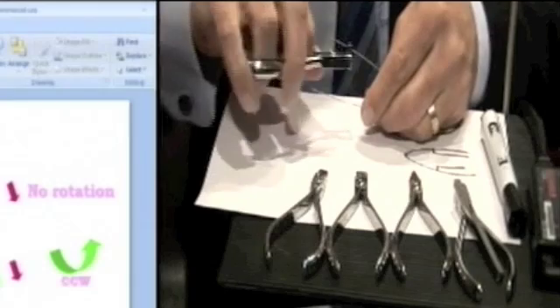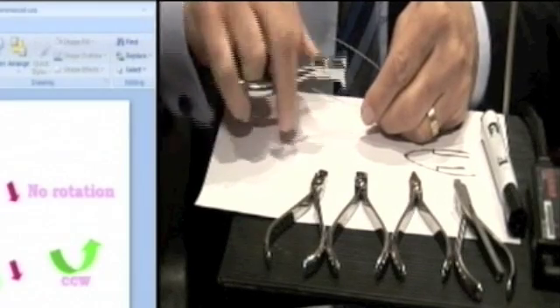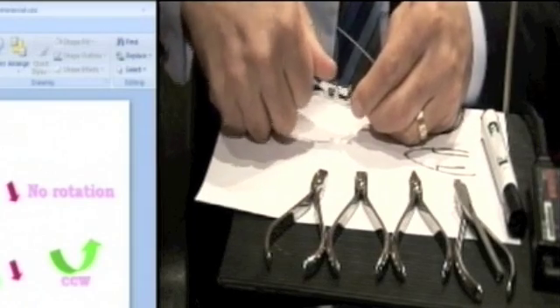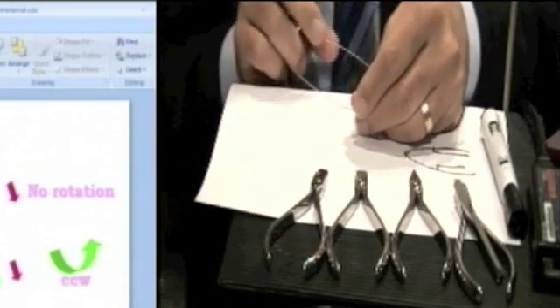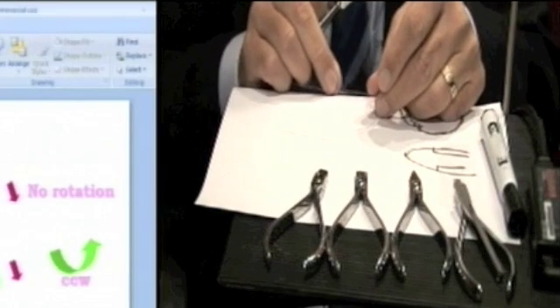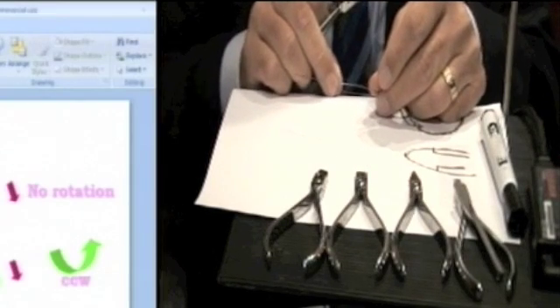Remember how I came with the plier this way? Now I'm going to come with the plier this way. And if I press that, can everyone see there is my vertical bend. So it's very simple.